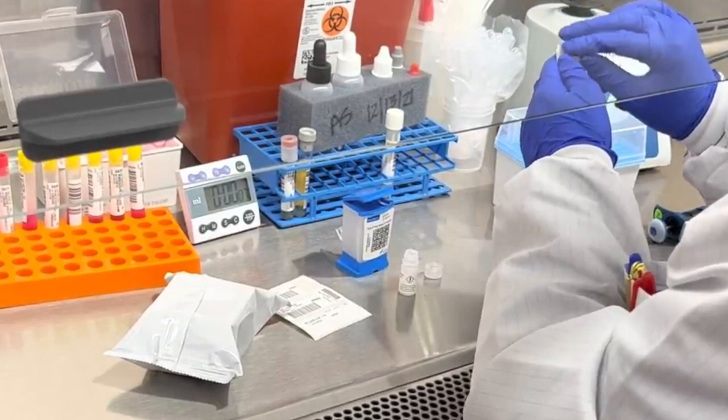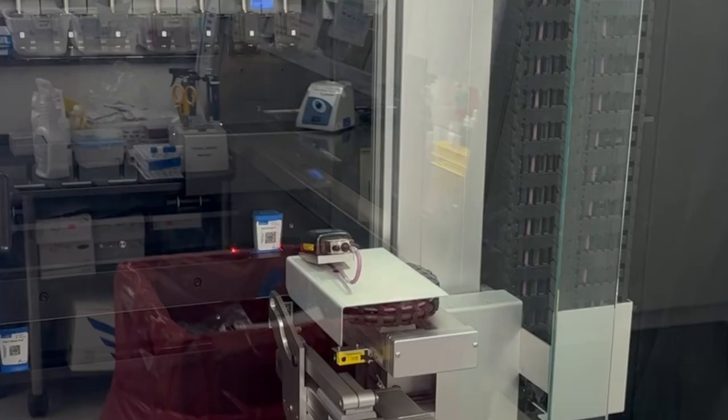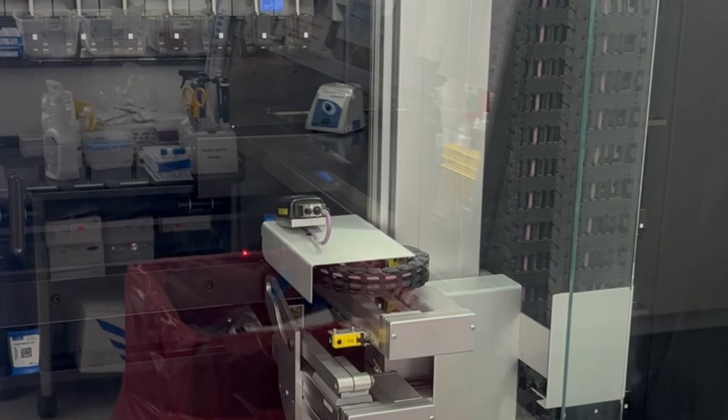Here, a technologist is setting up a swab to detect staph aureus colonization in a patient. The PCR reaction is contained within the test cartridge. Once the patient sample is added, the cartridge is loaded onto the machine. The Cepheid system is an on-demand, random access system that allows multiple tests to be run at the same time as needed, providing rapid results.